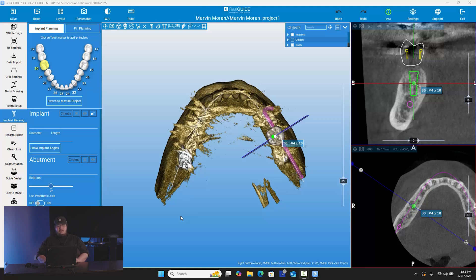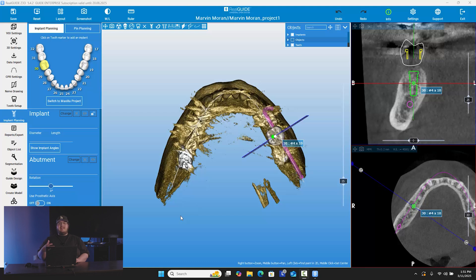This is actually the case that we worked on in the last video, which covered a simple implant planning case, showing you the steps of the actual treatment plan software, all the tools and everything that it possesses. We have our treatment plan done, and a lot of times when we do treatment plans, we go ahead and get them approved by the doctor before fabrication of the guide is even made. So for this case, it has been approved, and now we're going to move forward to the next phase, which is actually creating the surgical guide.